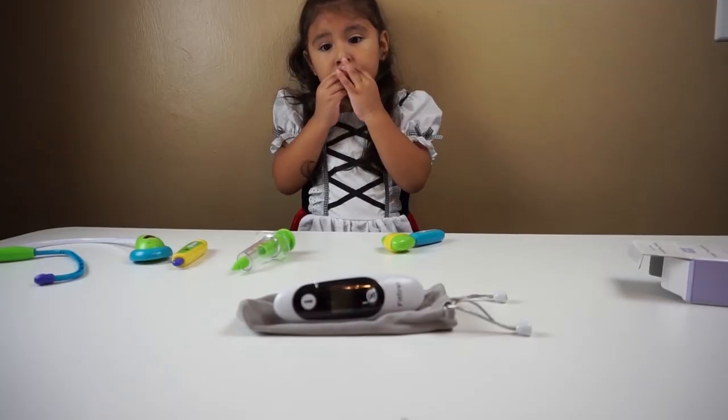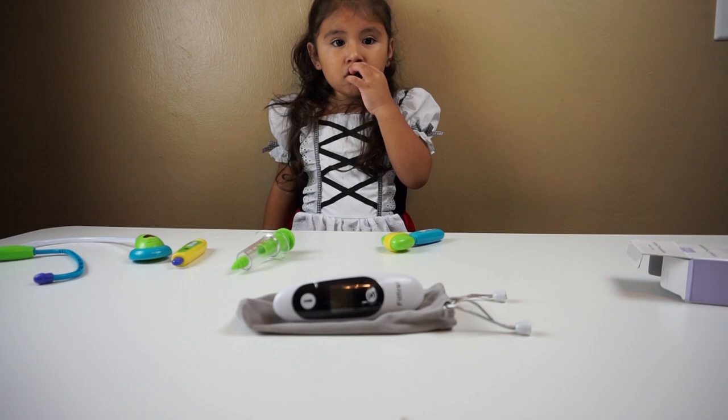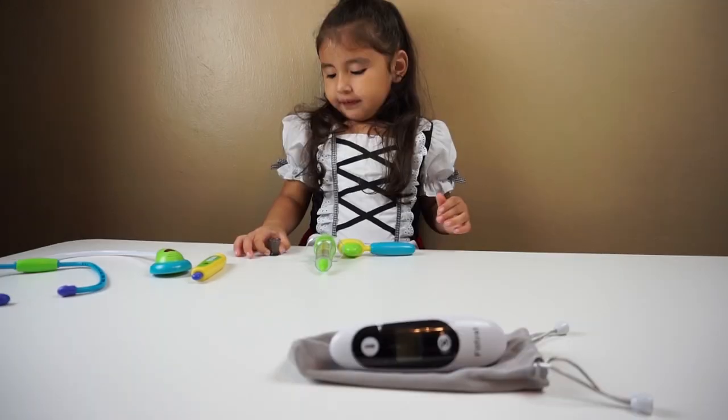So this is nice. I really love the product. Very helpful. Nice to have at home, especially when you have kids like Allie. Really small. And yes, I really like the product and it's easy to work with. Thank you.